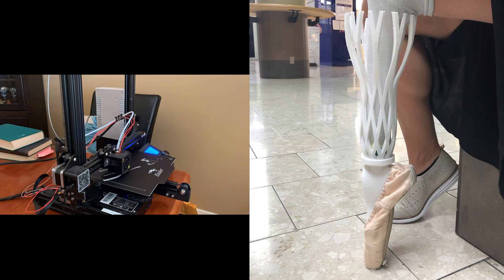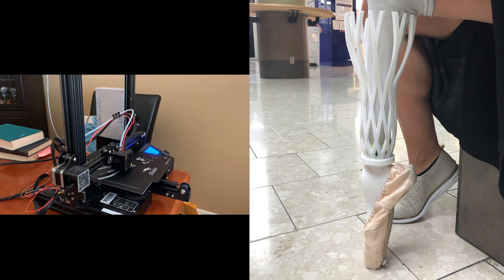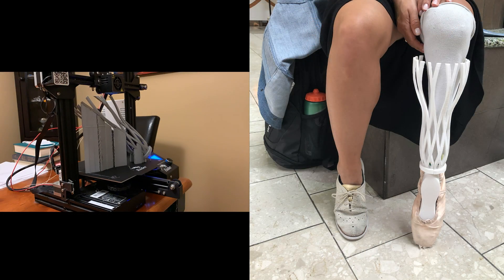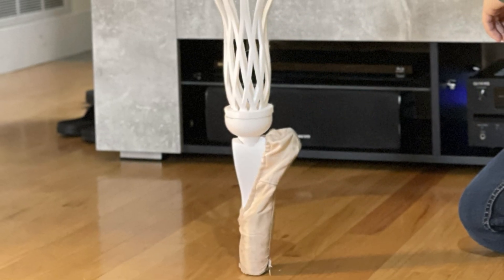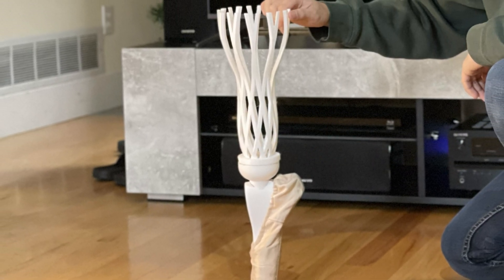There's a lot of CAD designing and solid mechanics involved in making a stable prosthetic for the amputee. Thanks to all the university lectures, this helped gain my knowledge in this application. I also don't want to forget the physiology and measurements to match the prosthetic to the amputee's leg on her right side. This is where biomedical engineering plays a huge role in combining physiology and engineering all together.